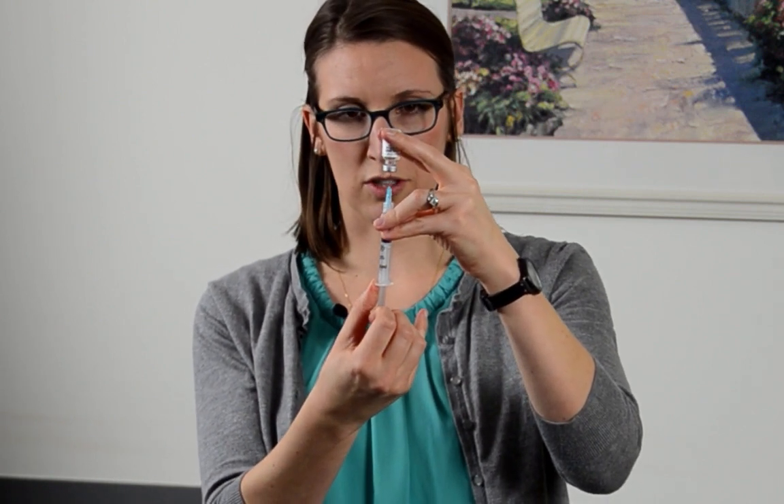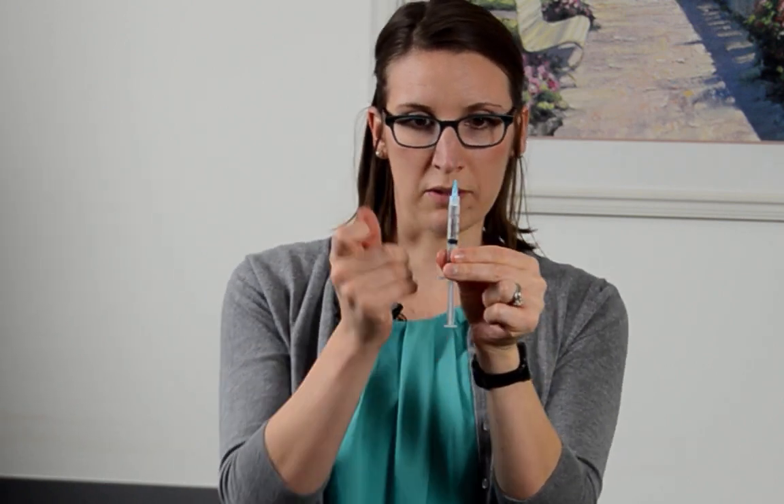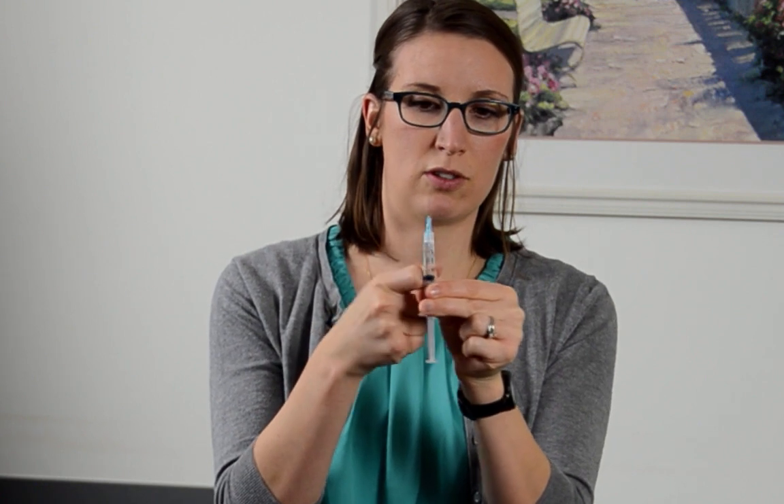To prepare a dose, we'll first remove the plastic cap from the vial and grab your needle and syringe. Now since we're injecting this medication, we want to try and keep the rubber cap and the tip of the needle clean, so avoid touching those as you prepare your dose. Remove the cap from your needle and insert it into the rubber stopper. Now withdraw the full contents. Get rid of any bubbles by sharply tapping the syringe and removing any air so that we're left with one milliliter of liquid. Now your dose is ready for administration.